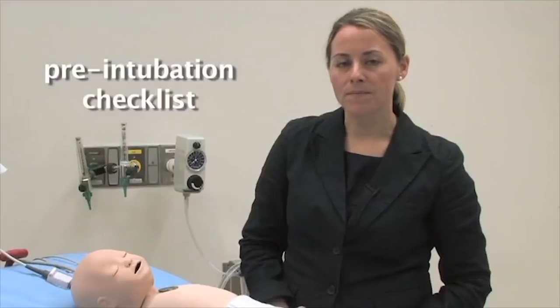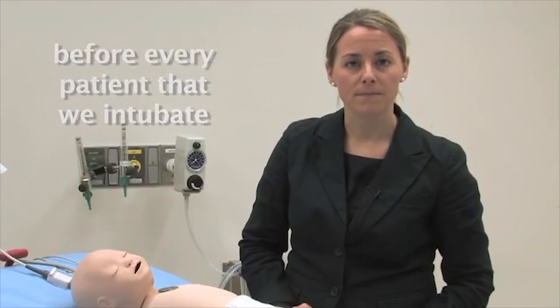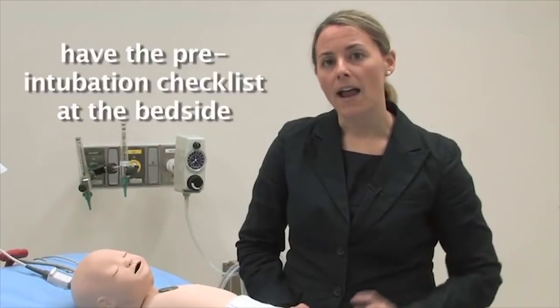In this video, I'm going to be animating the pre-intubation checklist and going through with you how we proceed with it before every patient that we intubate here in our intensive care unit. We often have the pre-intubation checklist with us at the bedside to make sure that all of our care providers — from physicians, nurses, respiratory therapists, and clinical assistants — are on the same page with what we're doing in terms of the intubation and what resources we might need available during the procedure.